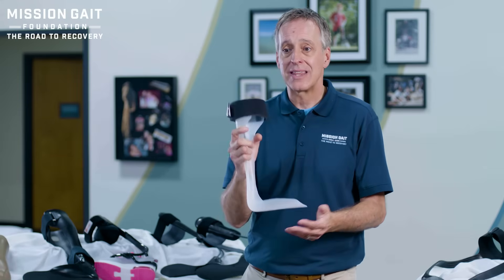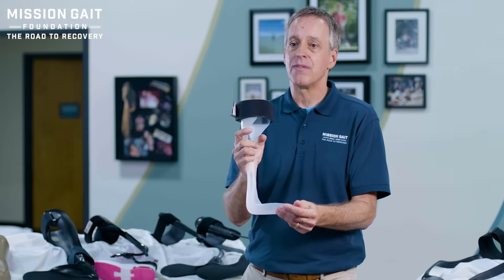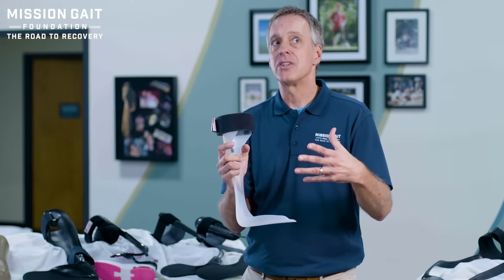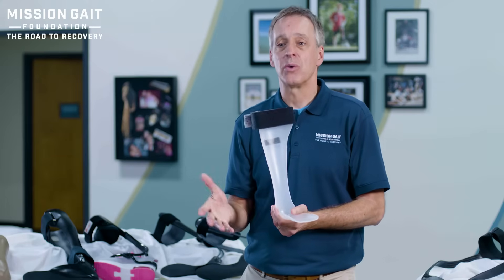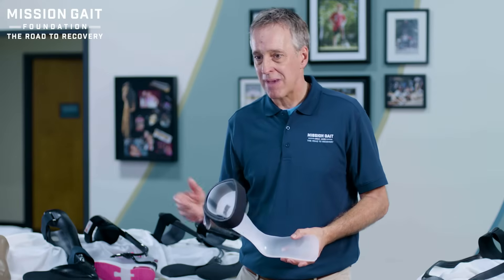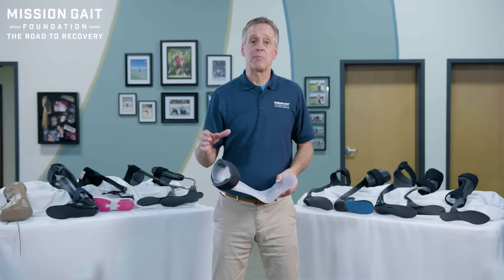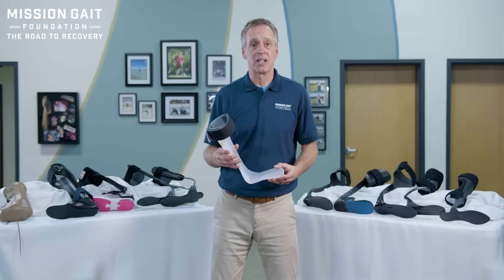You need to understand that because the brace needs to fit that diagnosis. And number four is instability — is the joint not only not working well, but also unstable and weak, rolling the ankle very easily? The truth is there's oftentimes a little bit of all those things involved, and you have to determine the brace that will deal with what you're actually dealing with.